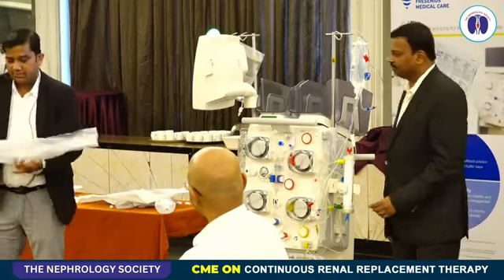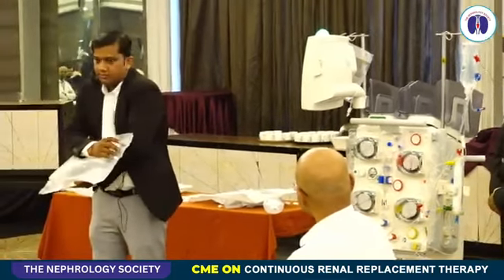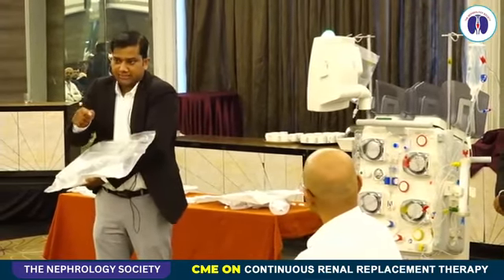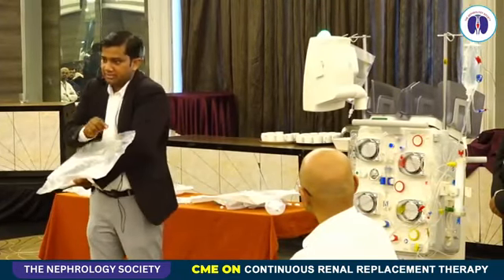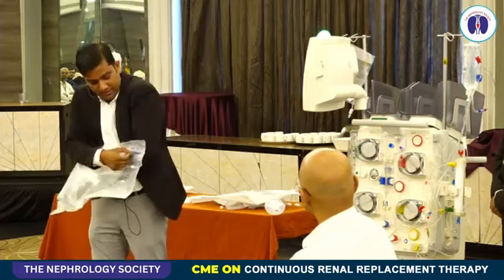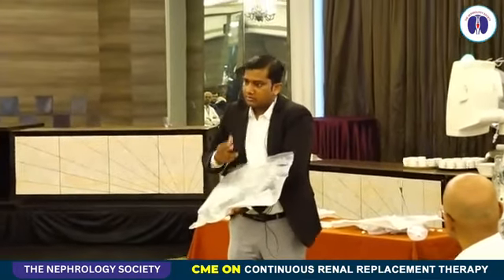This is a 5-liter bag and this is a connector. Via this, there is no spike adapter required. Again, tubings can directly plug in. These are Luer lock connectors. You can break the connection from there and place it. At a time, you can place 2 bags on one scale, so that you require a lesser frequency of bag change.